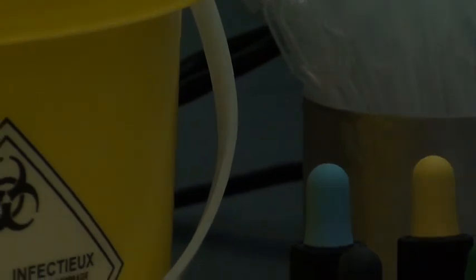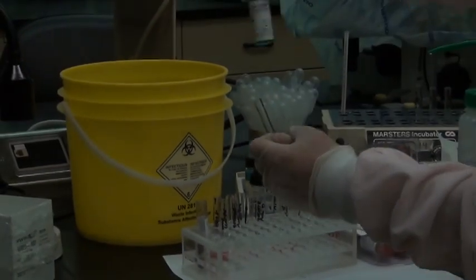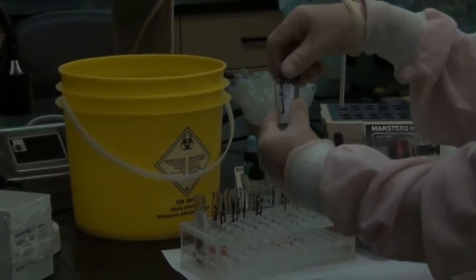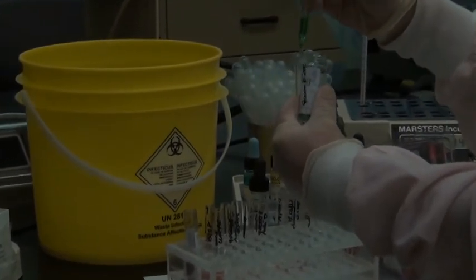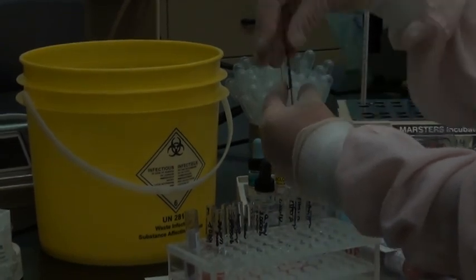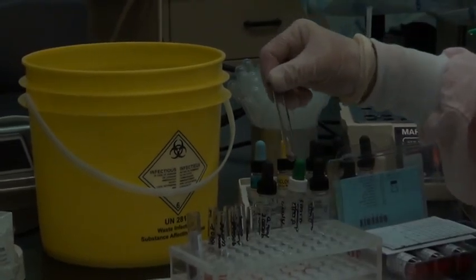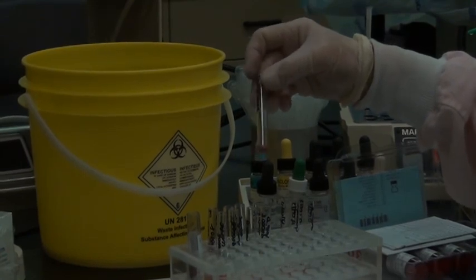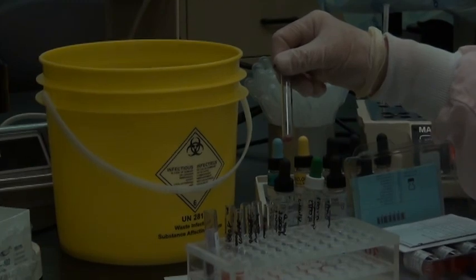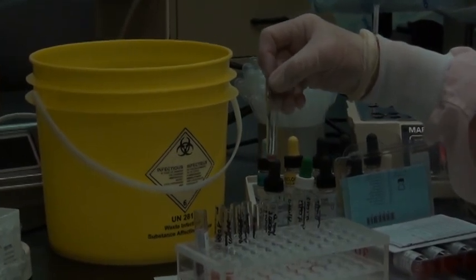So we'll do that. Anti-human globulin is, we use the anti-IgG here at SAIT, and it's a green color. So 2 drops. And hopefully you've got all your screening cells completed, screening cells 1, 2, and 3. And then you just put that in for an agglutination spin, 15 seconds, and proceed to waggle, grade, and record. And that's how you do a type and screen.